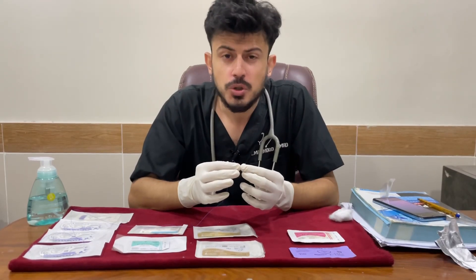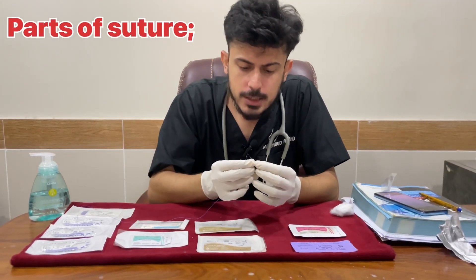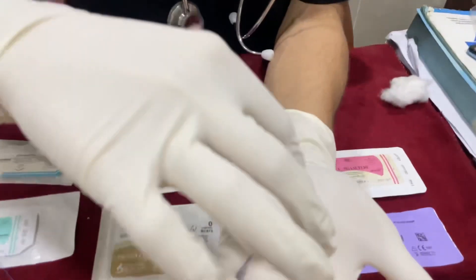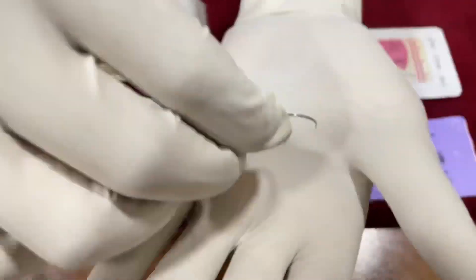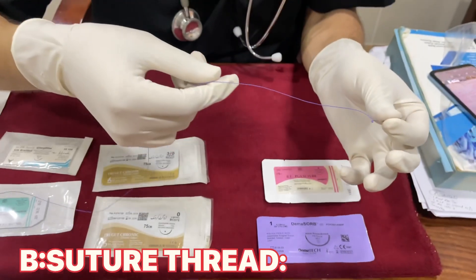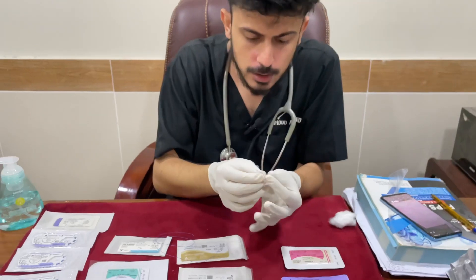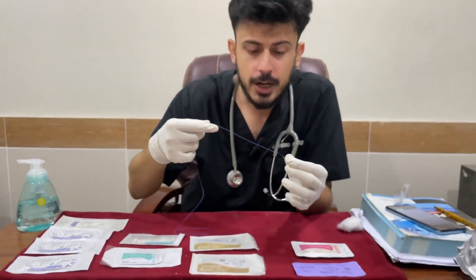The suture consists of two parts. This is known as the suture needle — if you can see properly, this is known as the suture needle — while the thread is known as the suture thread. To repeat: suture consists of two parts — needle and suture thread.